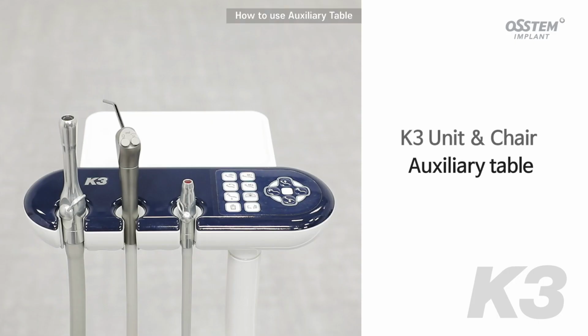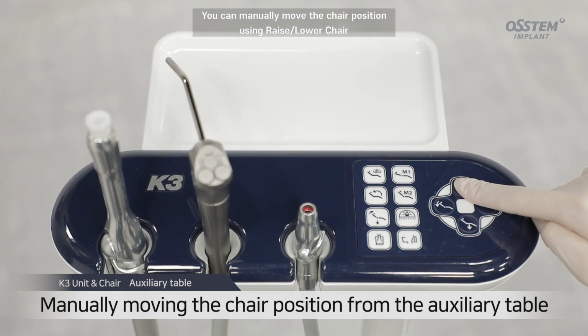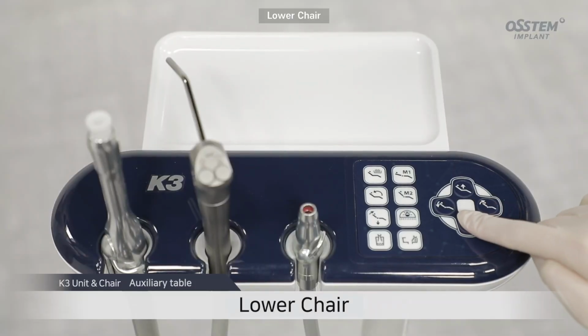How to use auxiliary table. You can manually move the chair position using raise lower chair or raise lower backrest buttons from the auxiliary table. Lower chair.